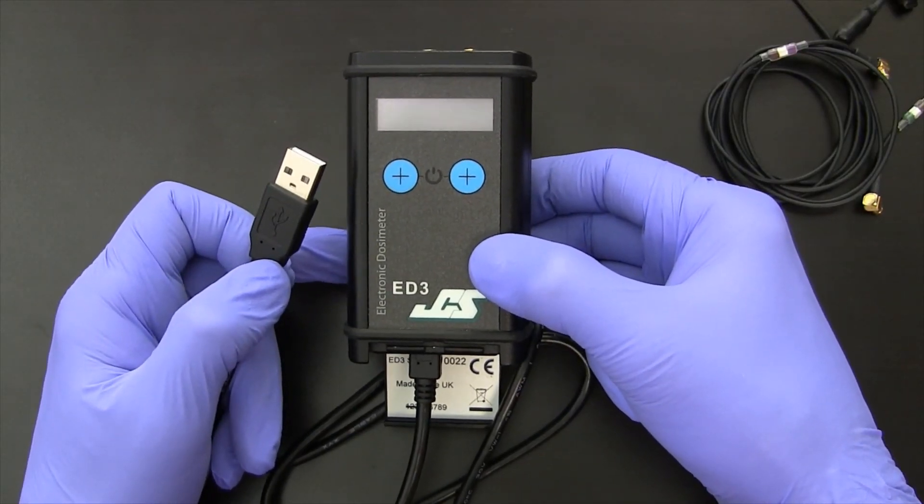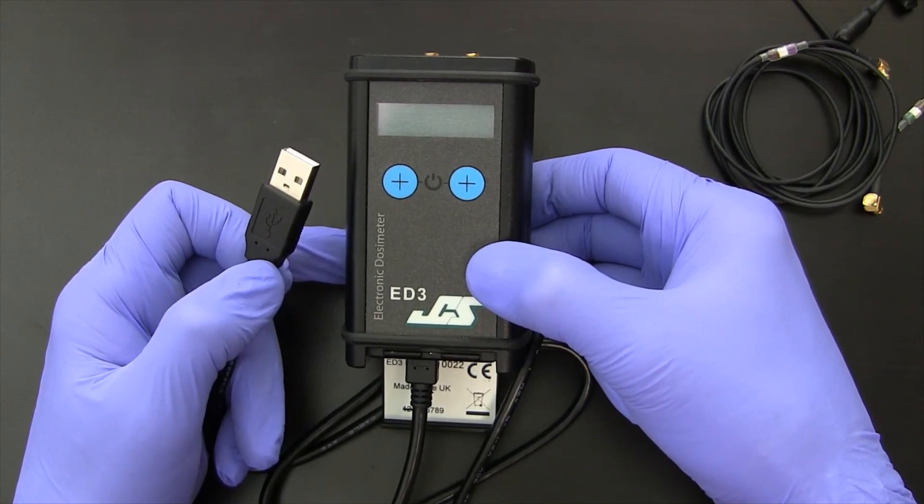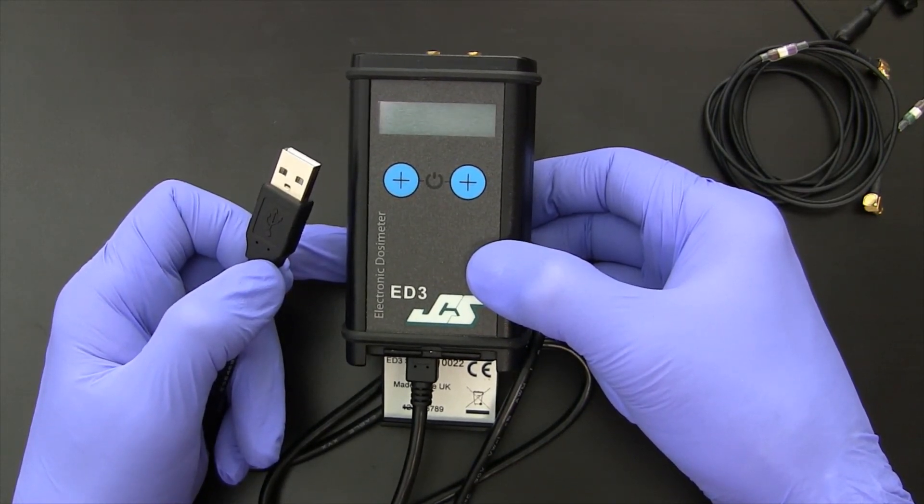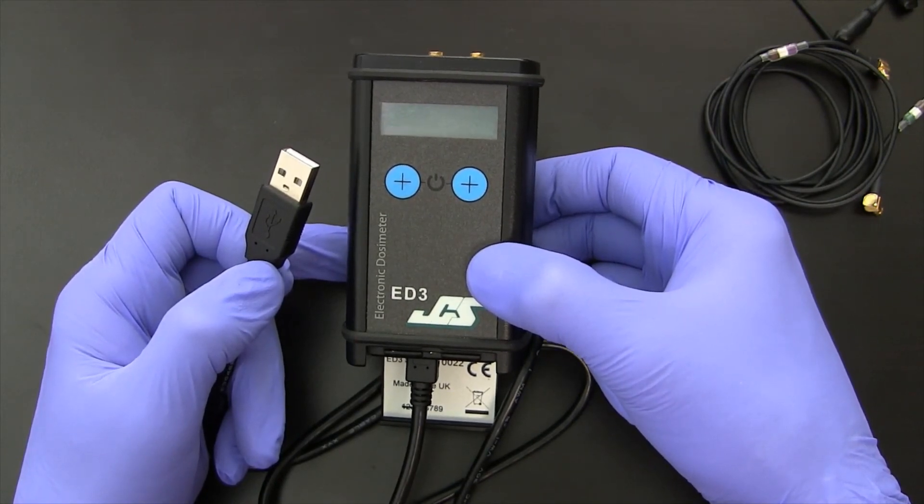We'll discuss using the software in another video. But this is all there is to using the ED3 Active Extremity Dosimeter. Whether you want to use one detector or two detectors, it just depends on your environment.